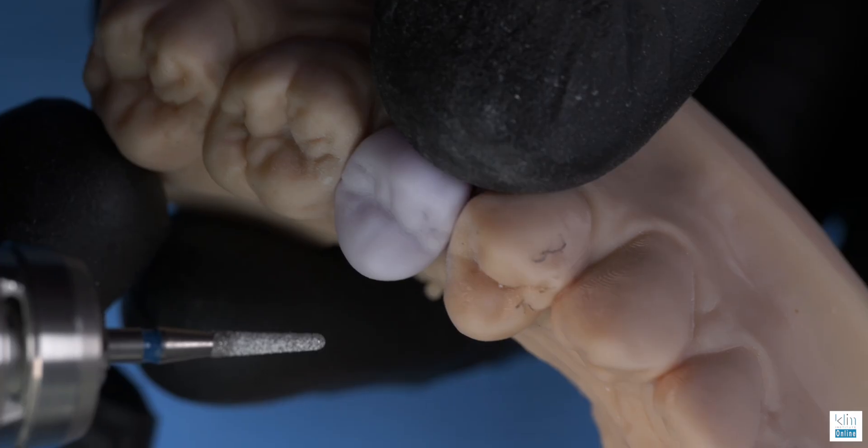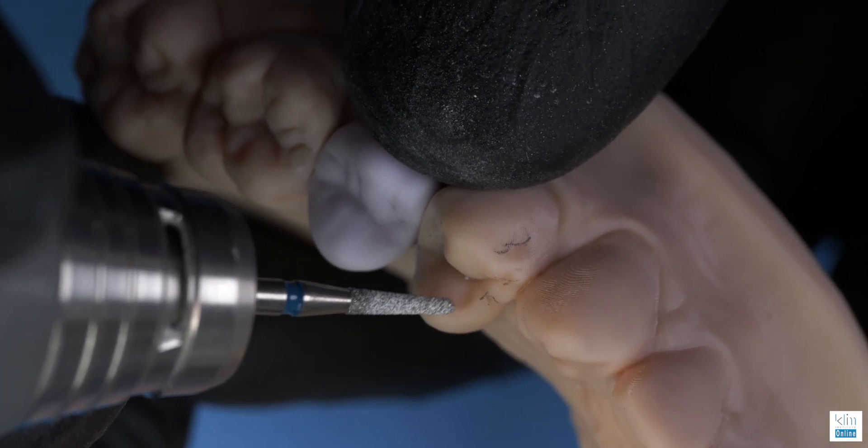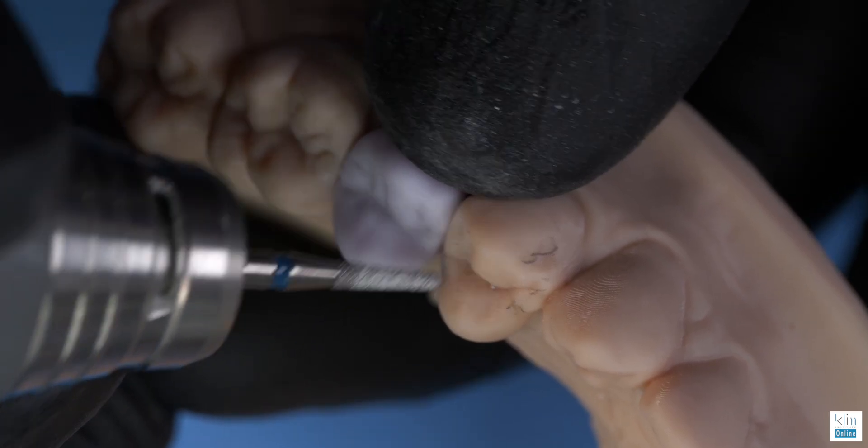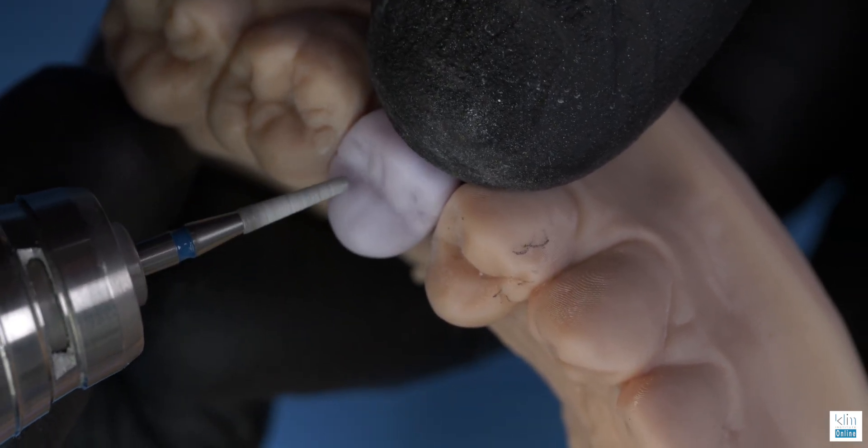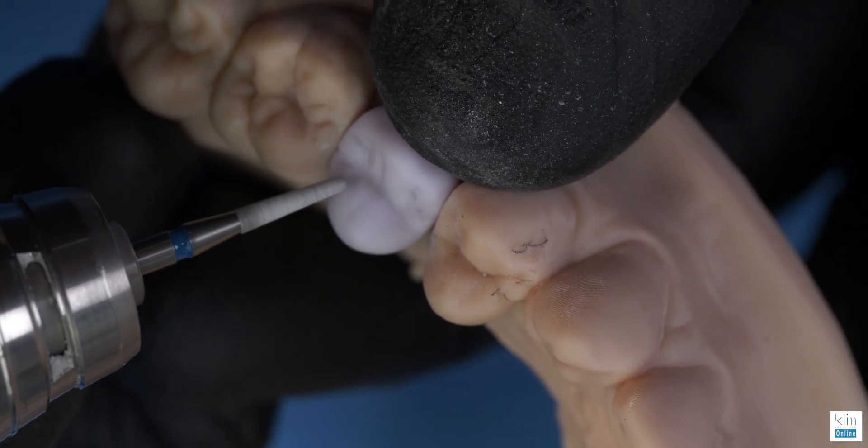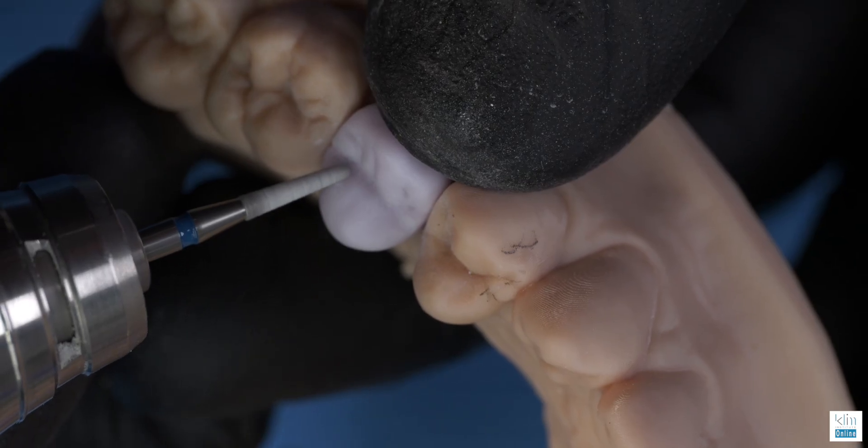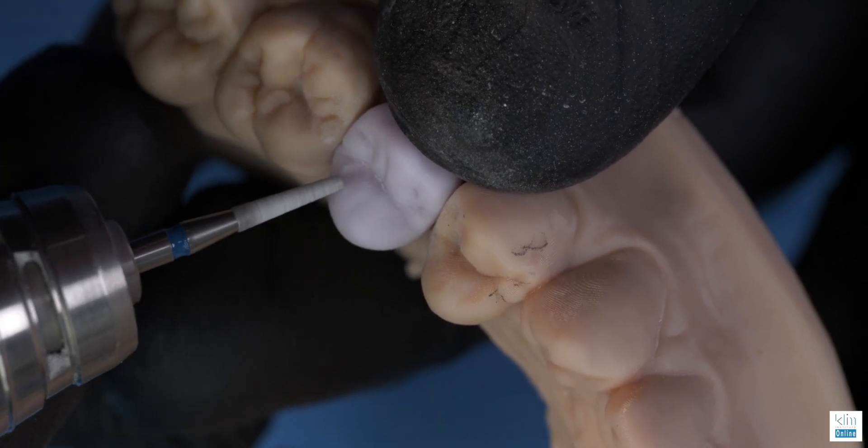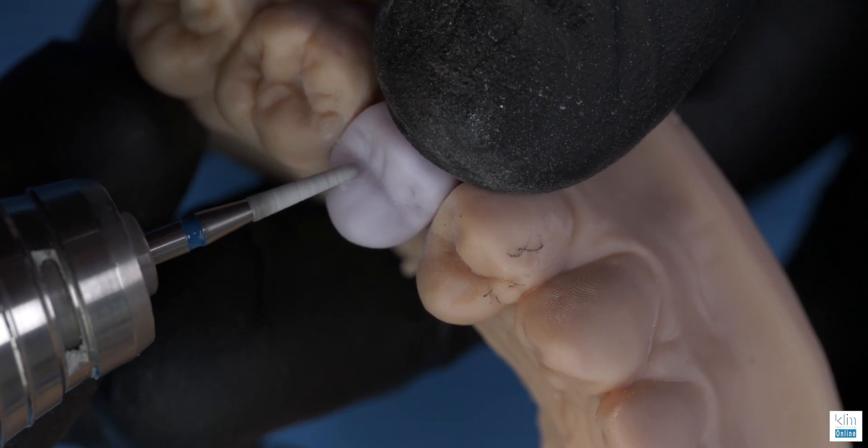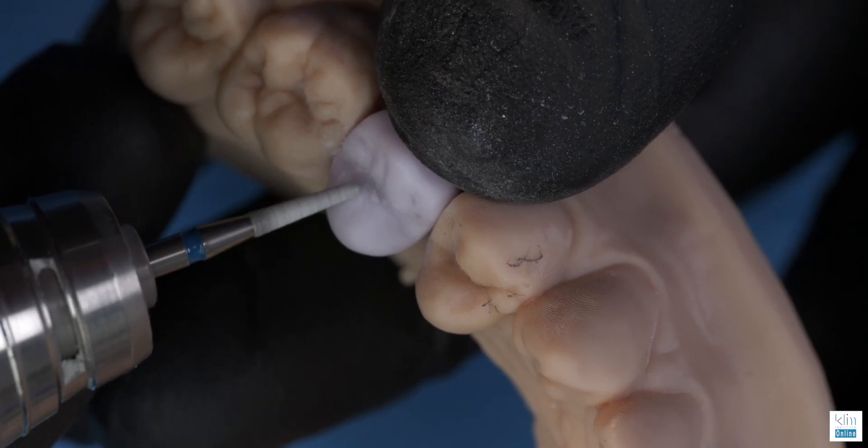This is the magic of refinement. I see another artistic need for lingual secondary groove refinement with 150. You can create more of a depression as you see on a fresh premolar. There's that depression. I'm just having fun accomplishing this. And as a noticer, you'll see more things.